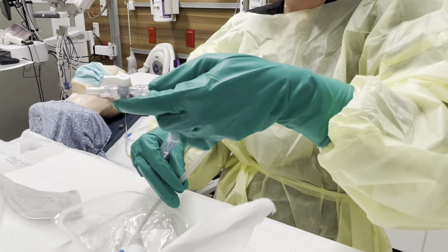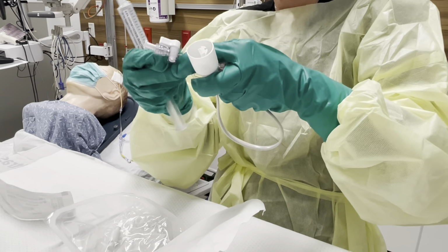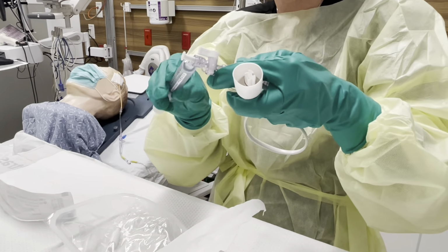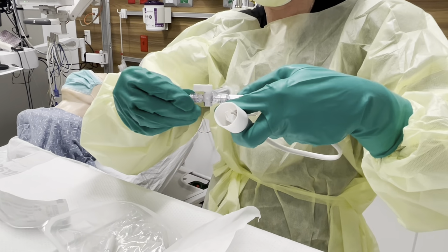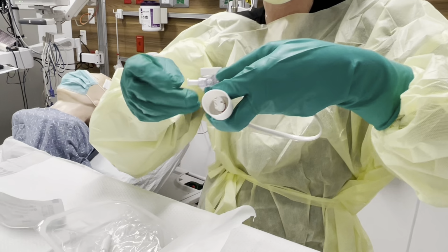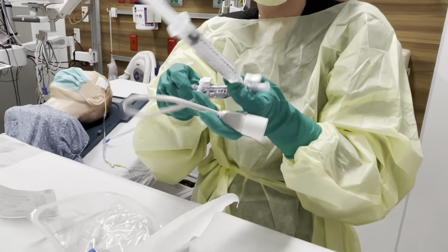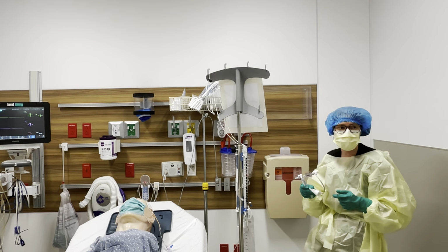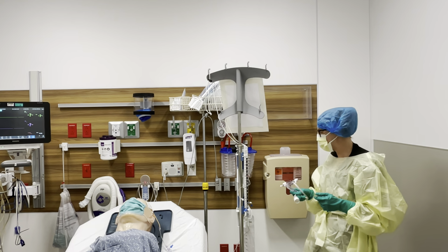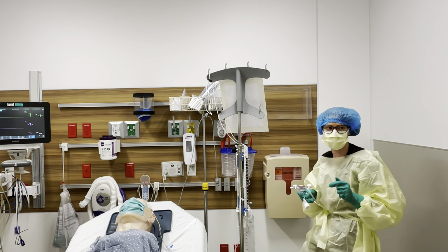So, all right, now what we're gonna do is take this off. We're gonna hook this up, okay? You can change your caps out here if that helps you. This is gonna end up going to the transducer, so you don't actually need a cap here. You're gonna need a cap over here. You're gonna have a friend come on over and, with clean gloves, not sterile gloves, remove this cap right over here.